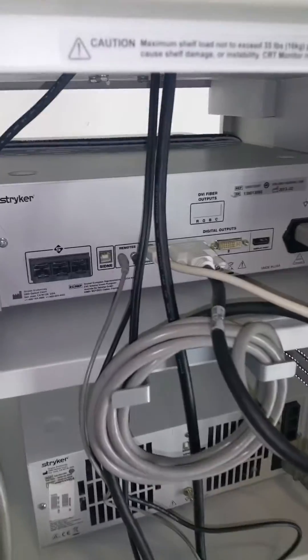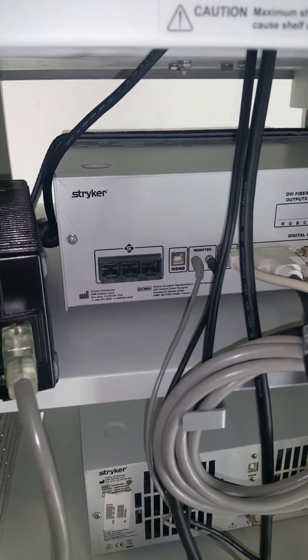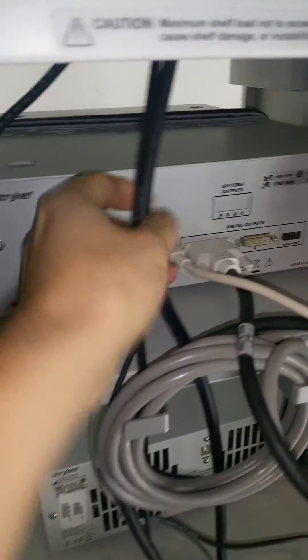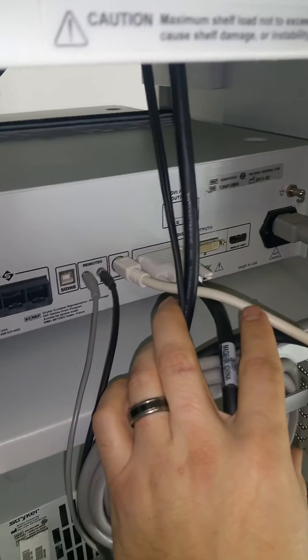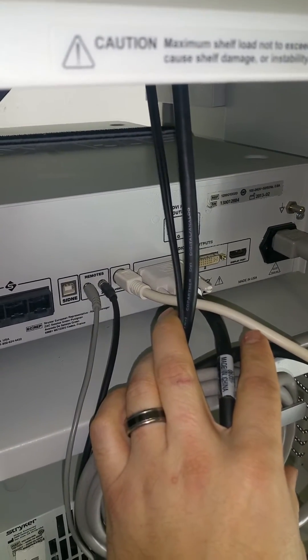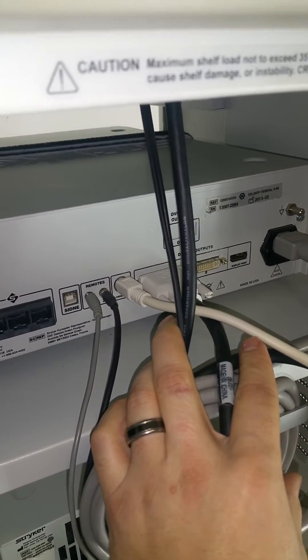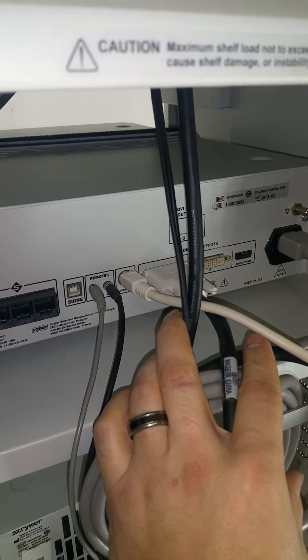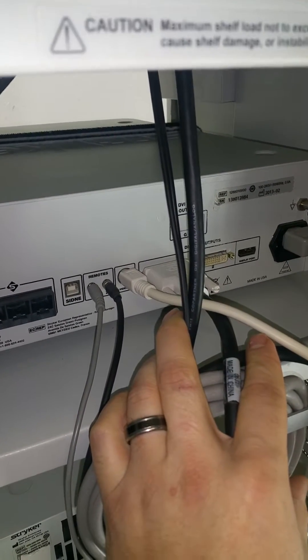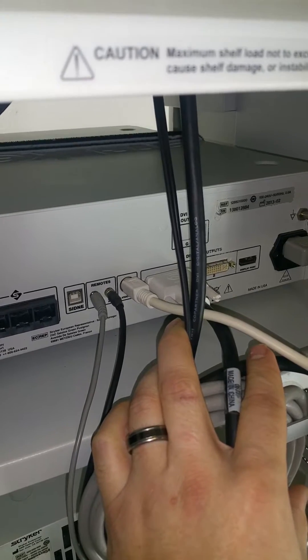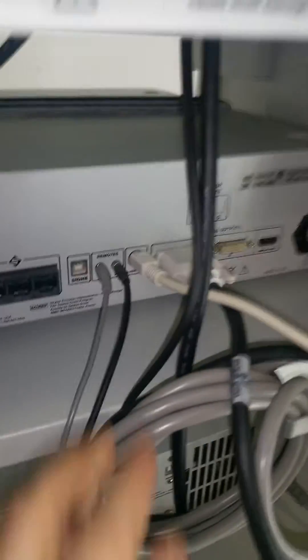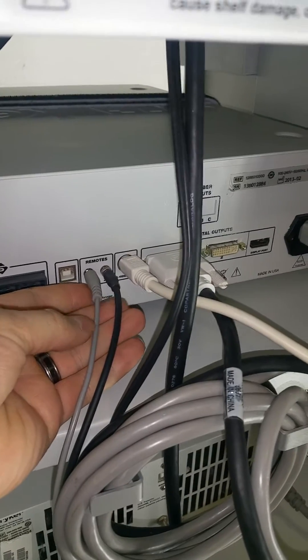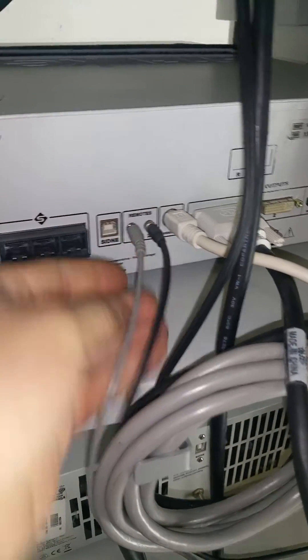Starting with the camera box. The camera box has multiple outputs, but the camera box only has outputs. So nothing's running through it. Every camera signal is coming into and from the camera box. I'm going to start here with the remotes. These are very important.